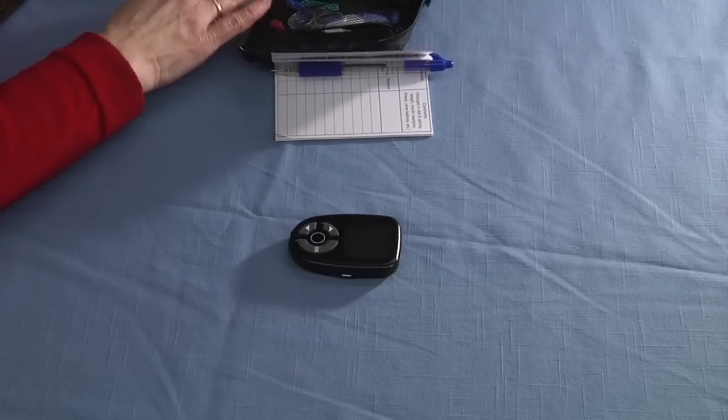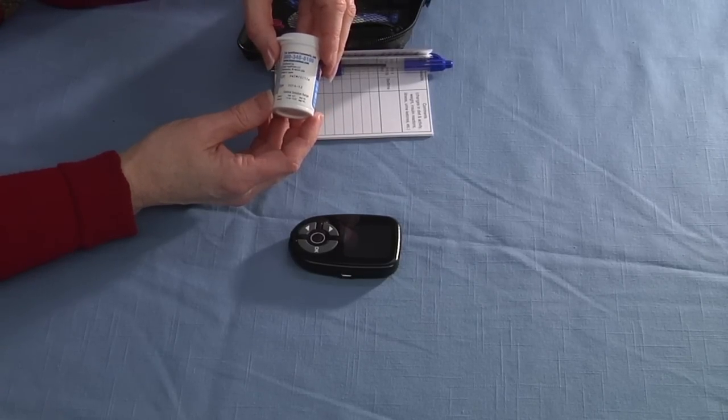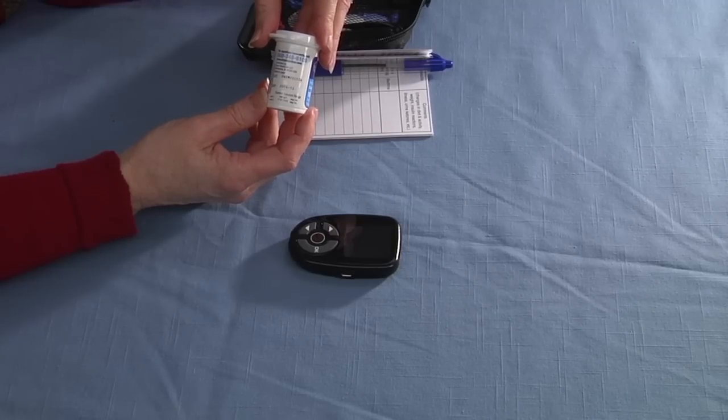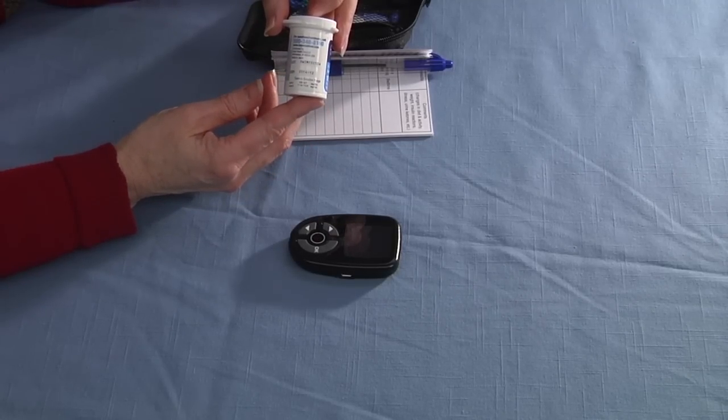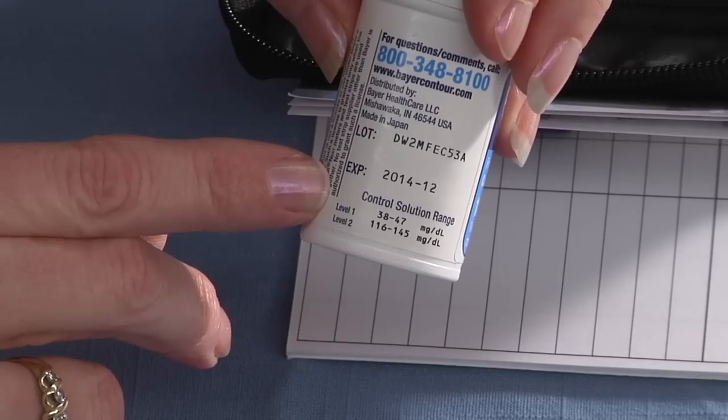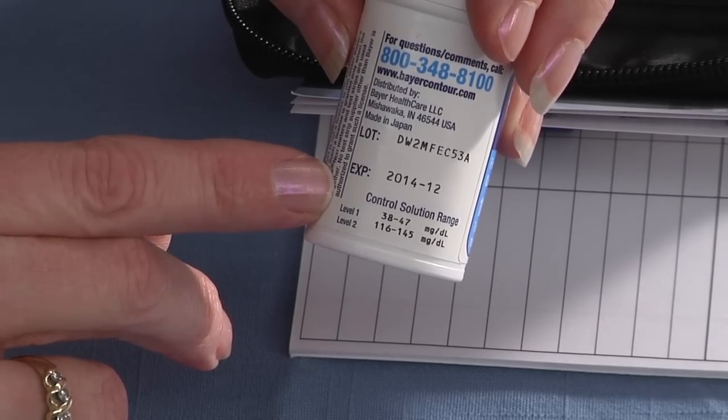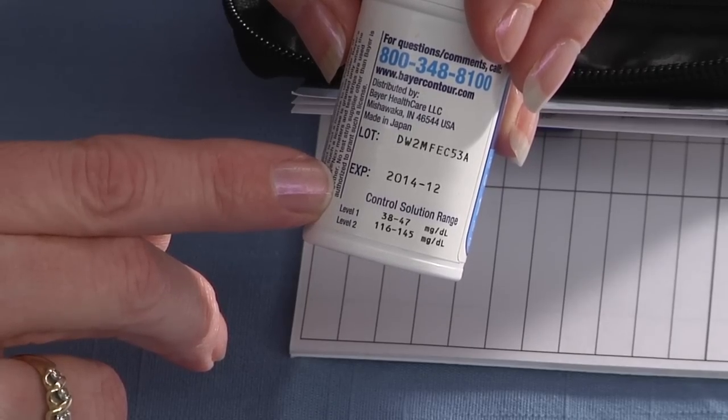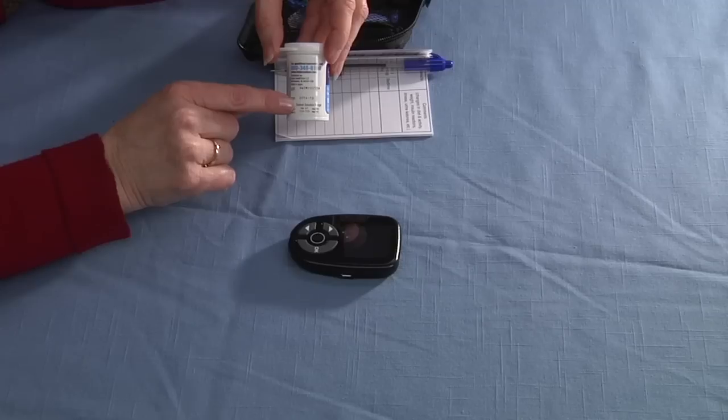The next thing you will need is your strips. Strips are very sensitive to light, temperature, and moisture, so you need to keep them in the vial that they came with. The other thing I want to point out is the expiration date. It's very important that they're not outdated. Do not use strips that are outdated. You may not get good results.